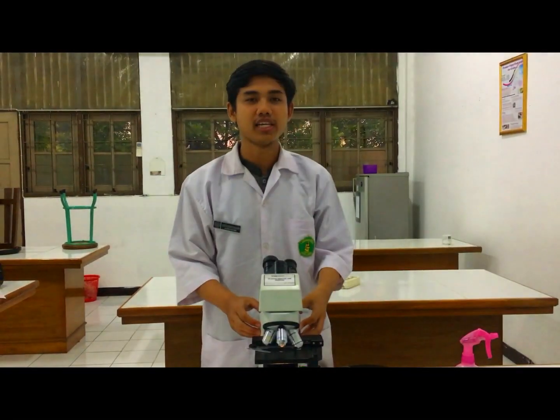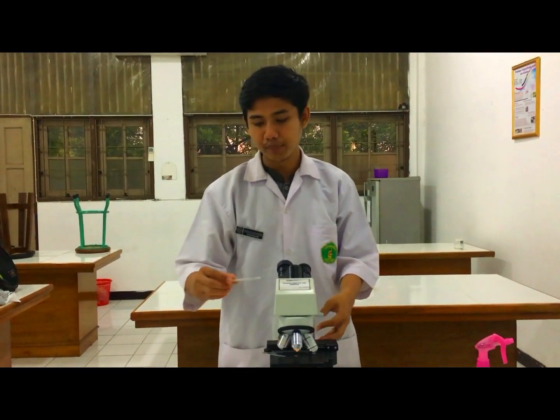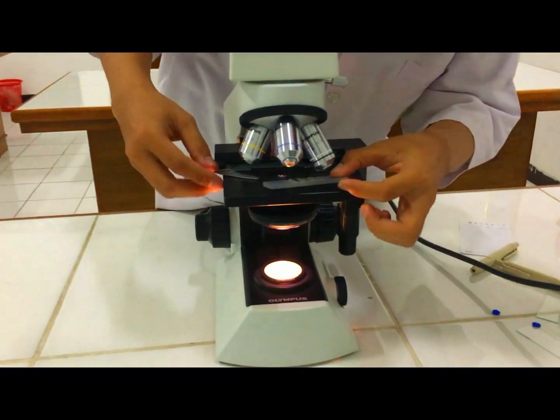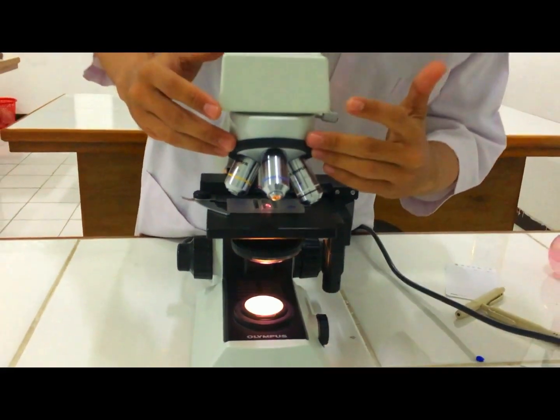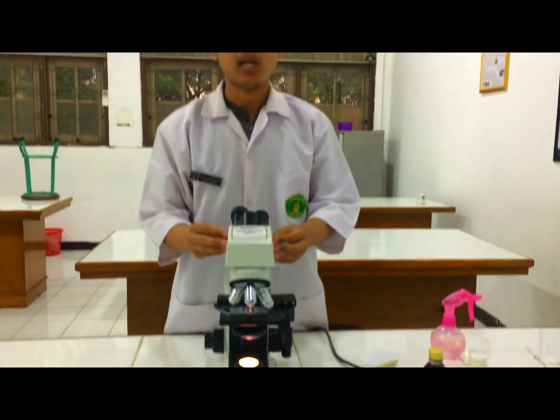The next step is to determine the count. Take the hemocytometer and place it under the microscope. Pastikan microscope pada perbesaran terkecil, dan perlu diingat bahwa menghitung jumlah eritrosit adalah menghitung pada sisi yang paling kecil. (Ensure the microscope is at the smallest magnification, and remember that counting erythrocytes means counting on the smallest grid.)